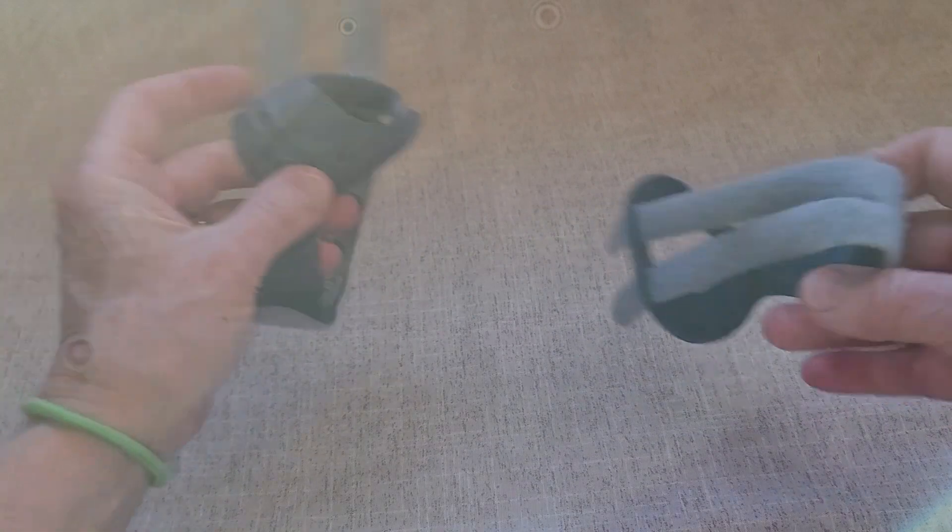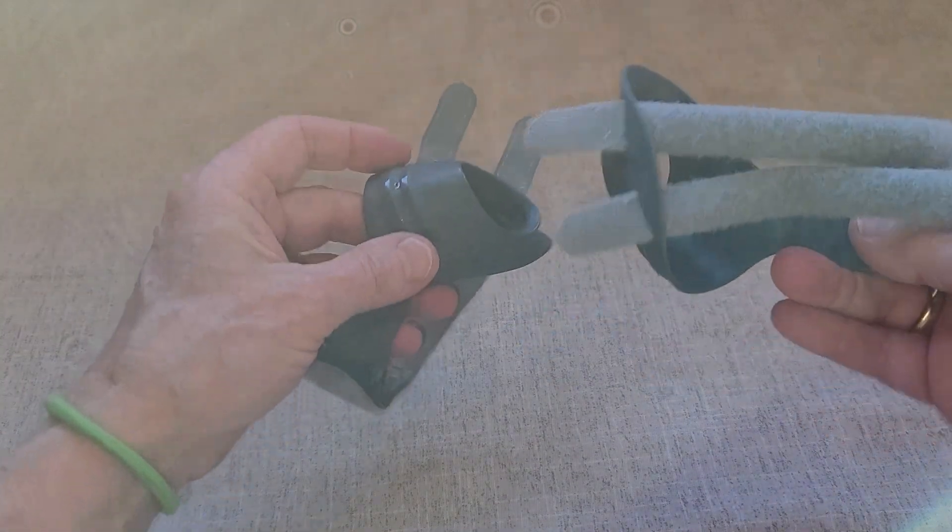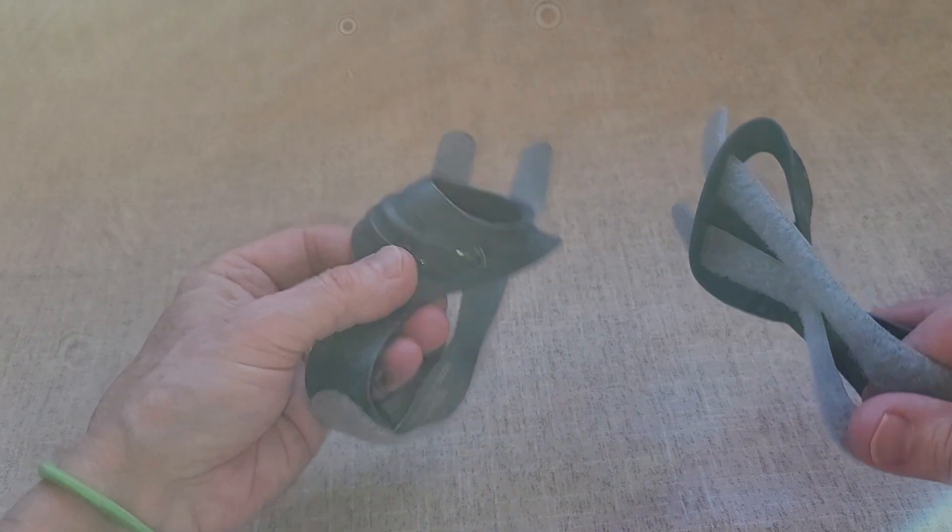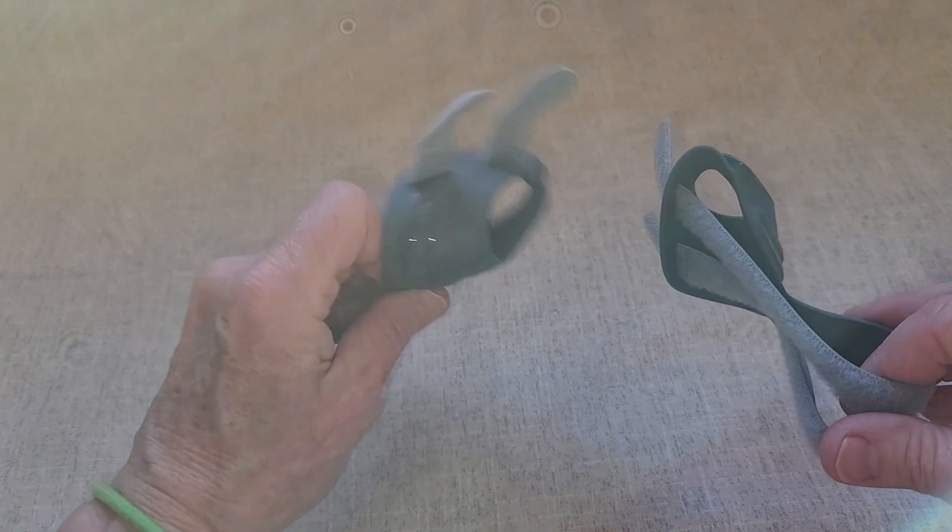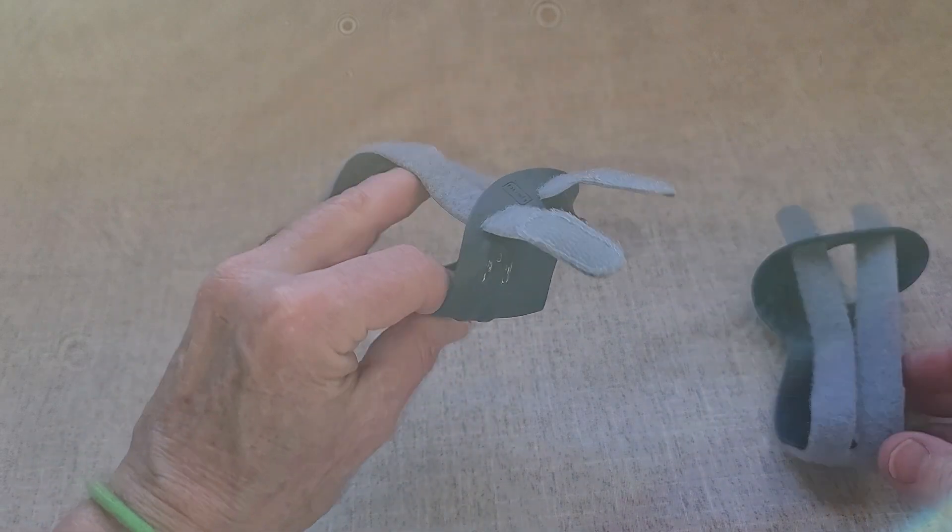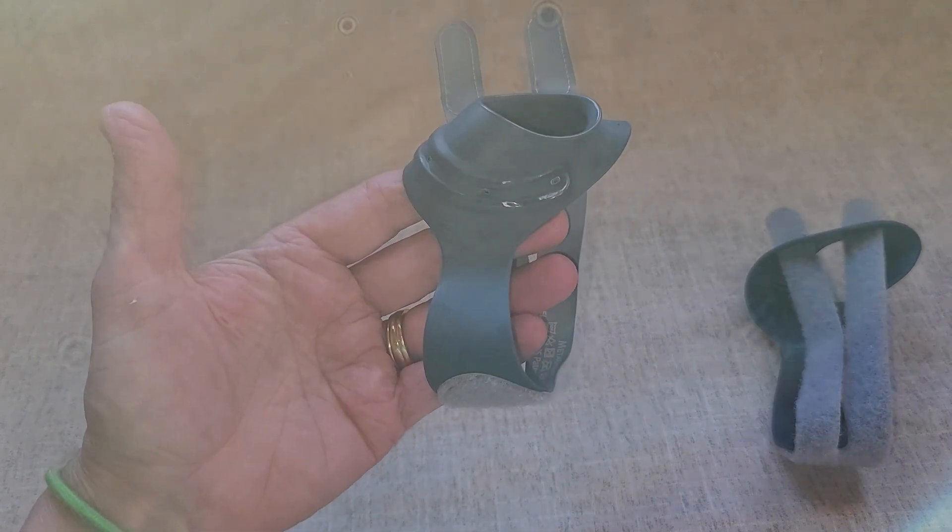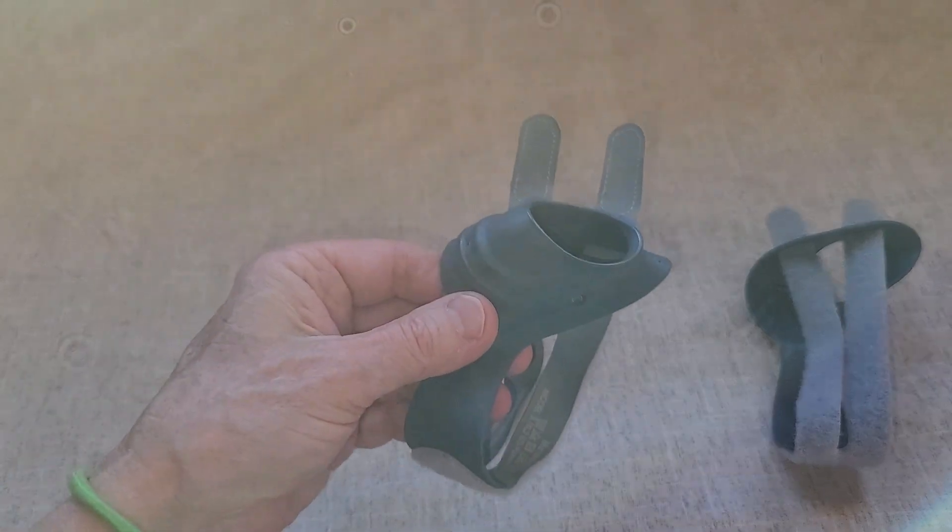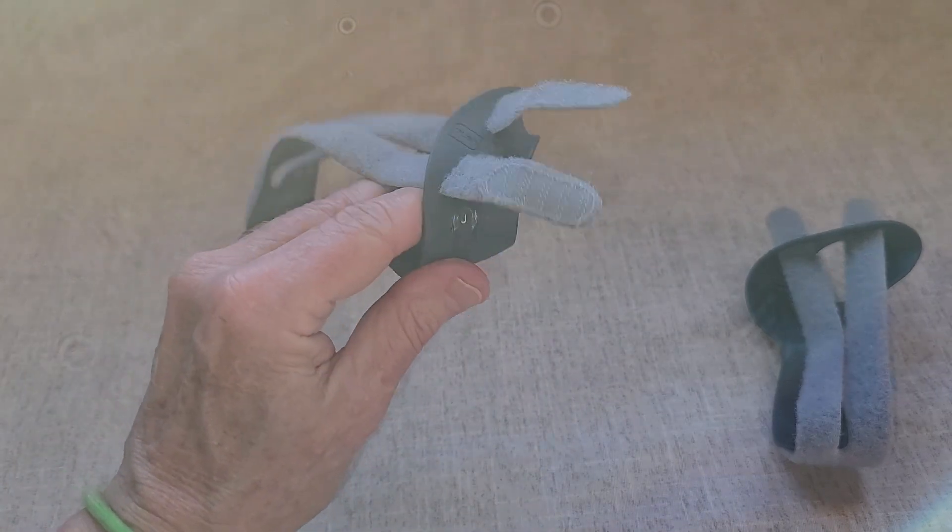And so that's why I got one for both the right and left hand. They are hand-specific. You can use the measurement guide on the website for ordering the correct size. I ended up going with the smalls, and those work quite well. So for that reason, I recommend the CMC Push Meta Thumb Brace.